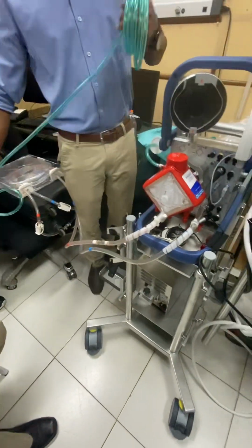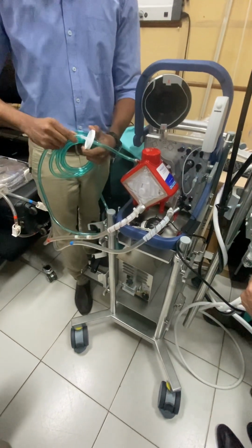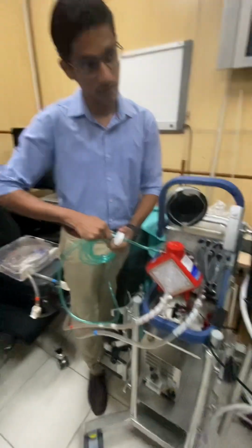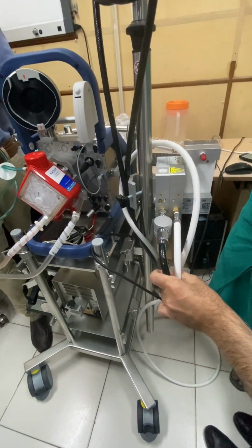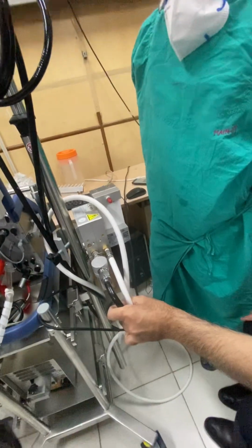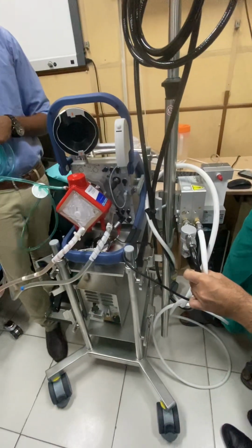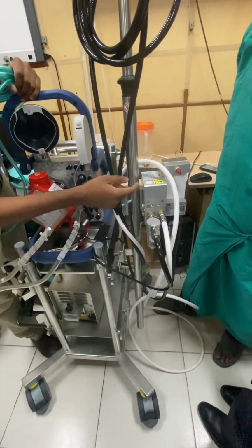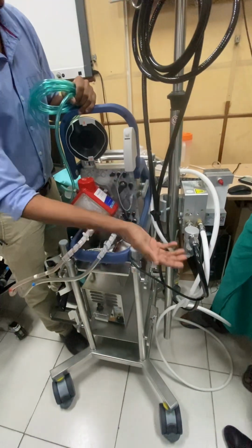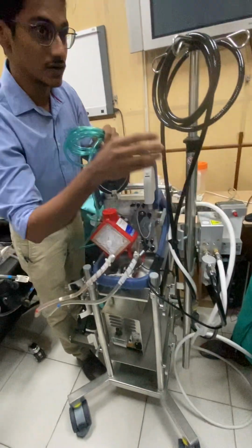This will come from the cylinder. Why are there two? One is for oxygen and the other is for air, the sweep. So what will you use them for? Sir, if you want oxygenation, you need to oxygenate, so you will provide oxygen. But if you want to remove carbon dioxide, you have to sweep it out. So through one oxygen will come. Through the other one, sweep air will come. So in the blender, you will titrate it.